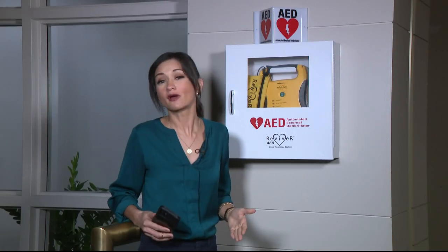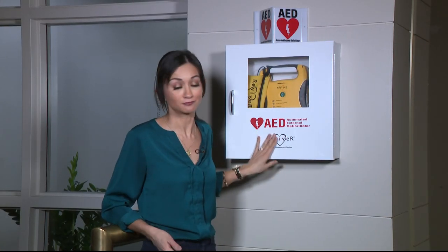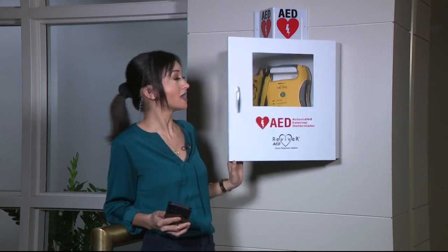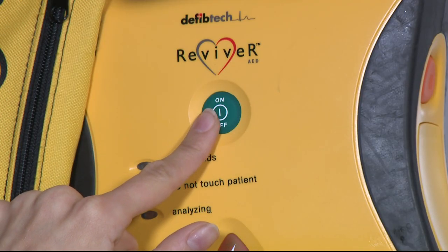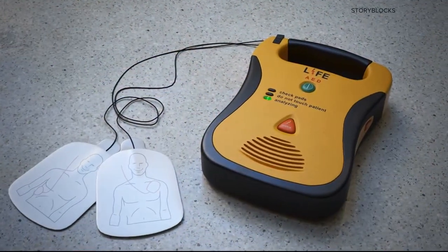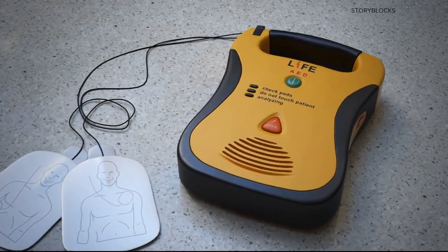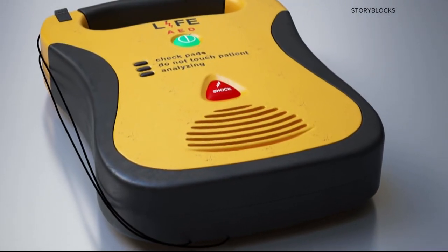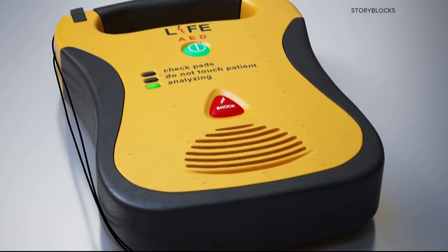In general, the Red Cross outlines these steps for using an AED. First, you or someone else should call 911, then turn on the AED and listen for its voice prompts. Attach the pads to the victim's dry, uncovered chest, and make sure the cables are connected to the machine. As the AED analyzes the person's pulse, make sure no one else is touching them.